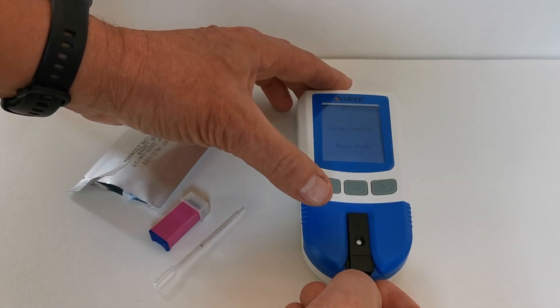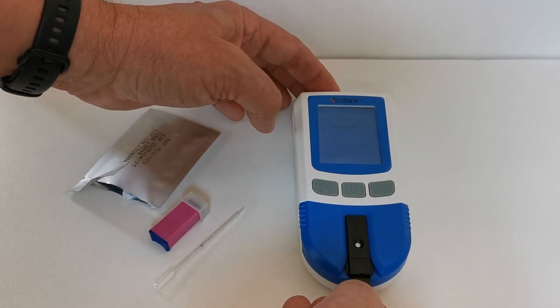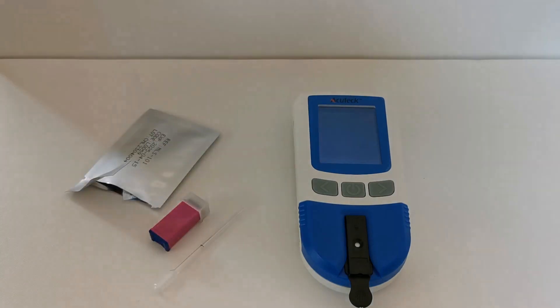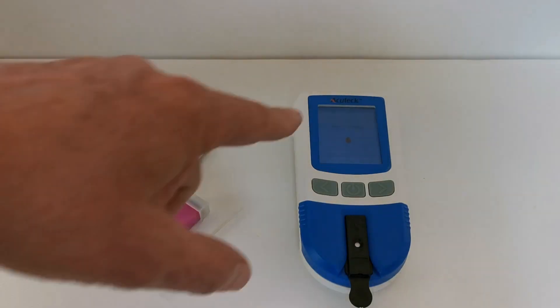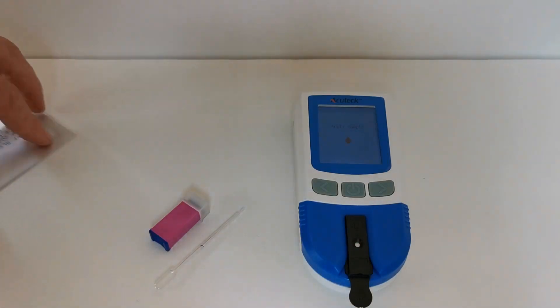Using the handle, insert the test strip until the monitor recognizes it and asks you to apply the sample.